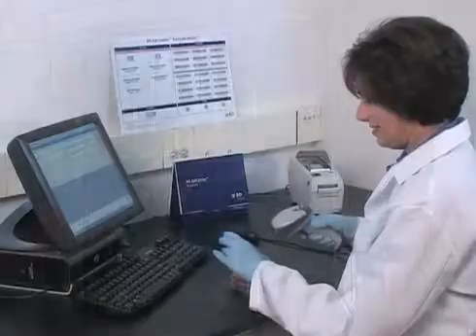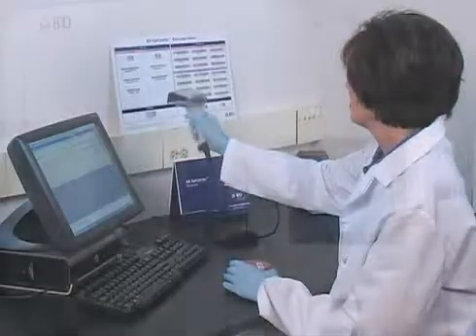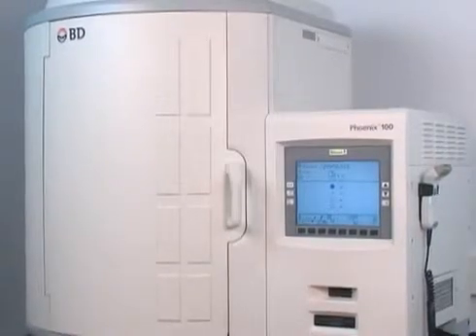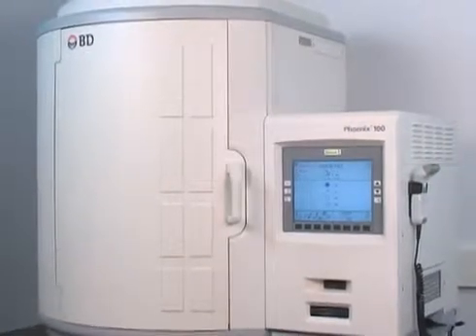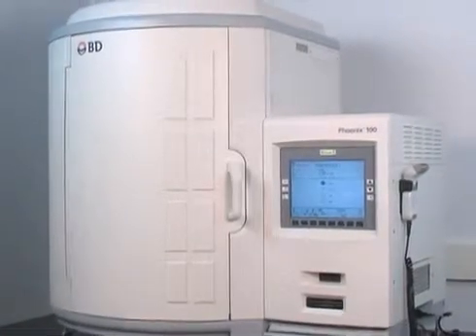Ask your BD Diagnostic Systems representative about availability of the BD Phoenix system in your area.